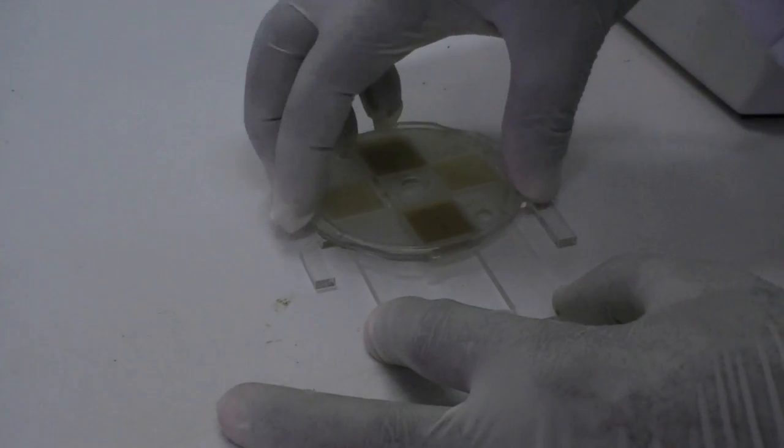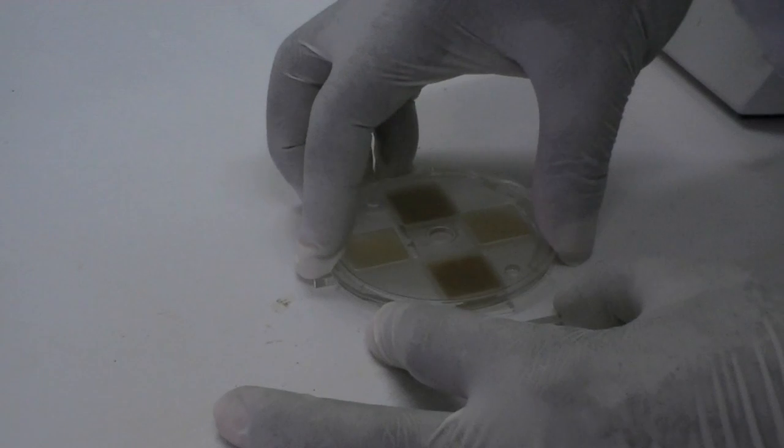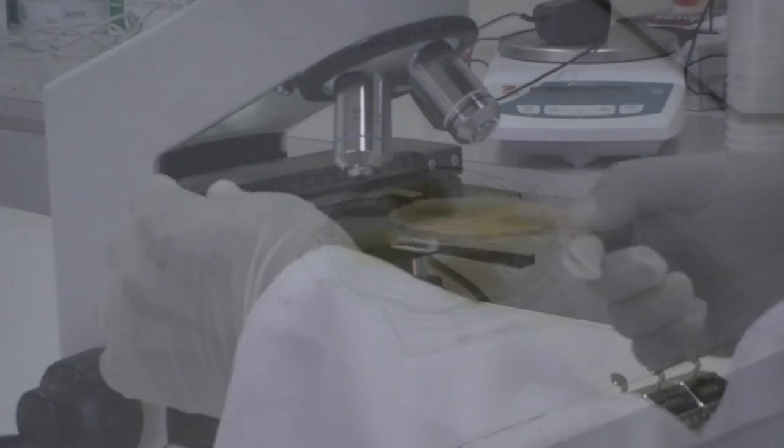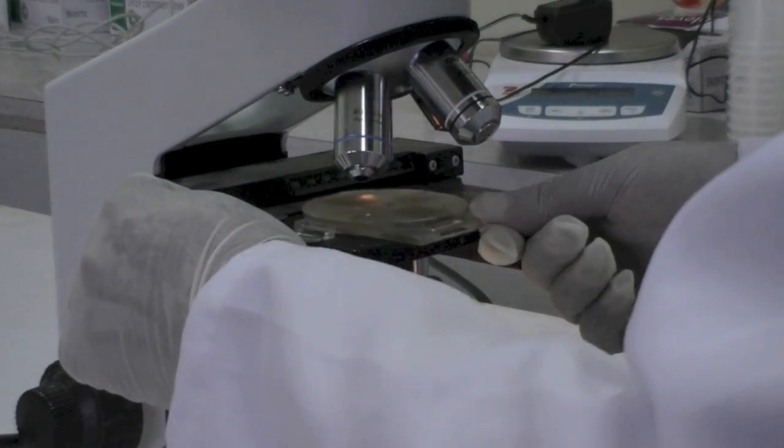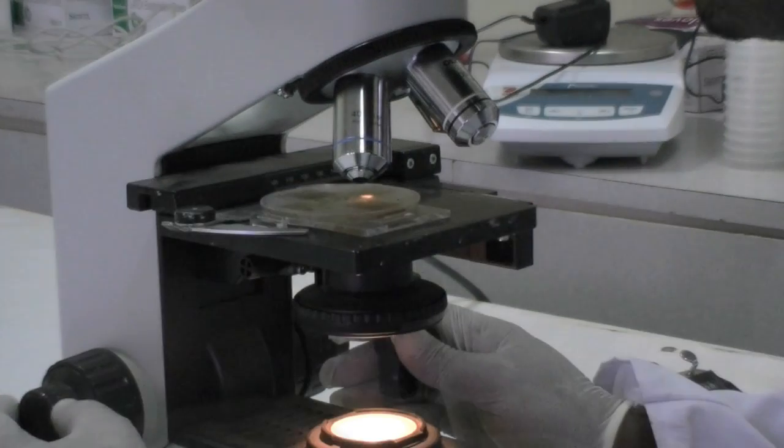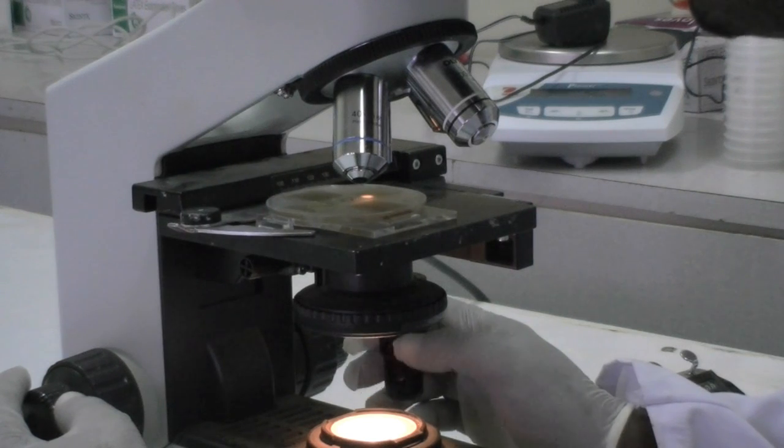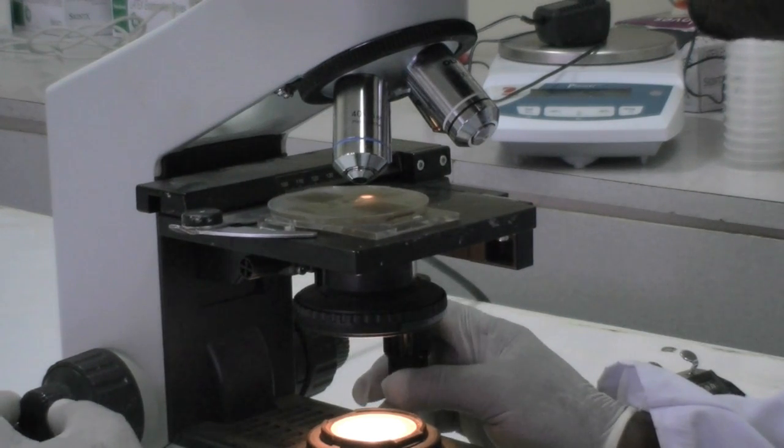These two parts should be placed in the microscope holder with the chambers sliding in the gap in the middle of the holder. Place the microscope holder and the mini FLOTAC on the microscope table and systematically screen the grids for the presence of helminth eggs by using the counter.